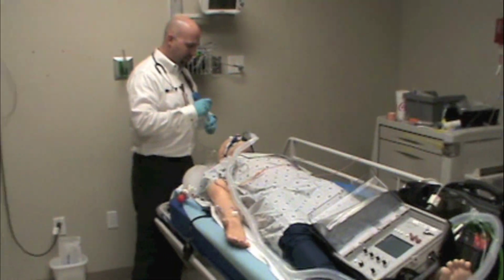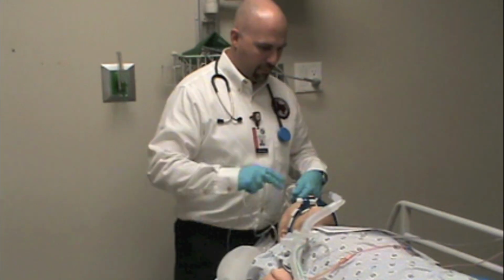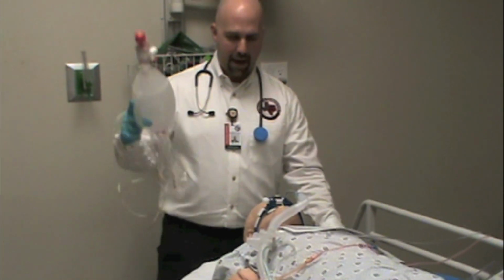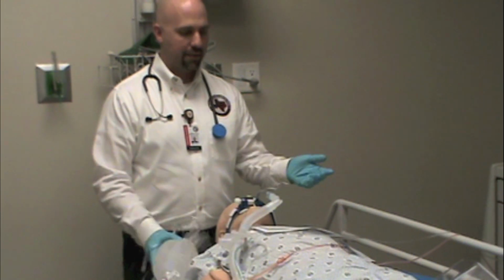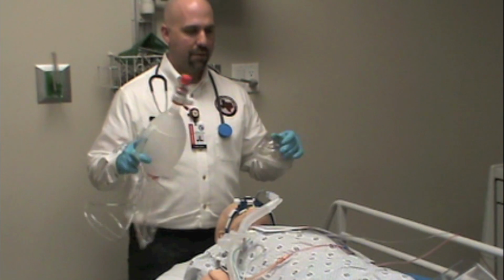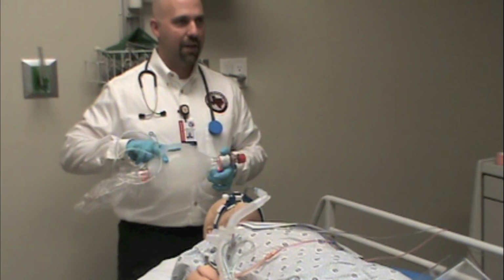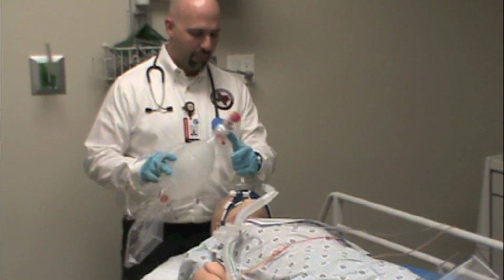So I've seen some pretty tragic scenarios where a crew would have the ventilator, they would have a BVM, and then something would happen and the tube would get displaced. And if the tube gets displaced and I don't have basic airway adjuncts to put together, then I can't ventilate the patient. And if we've paralyzed them or deeply sedated them, then we've set them up for a big problem.